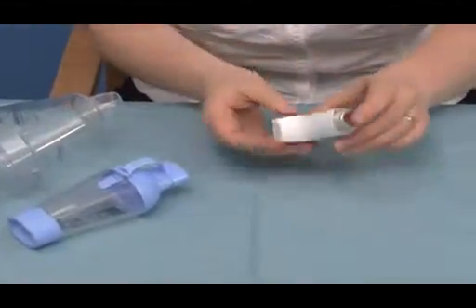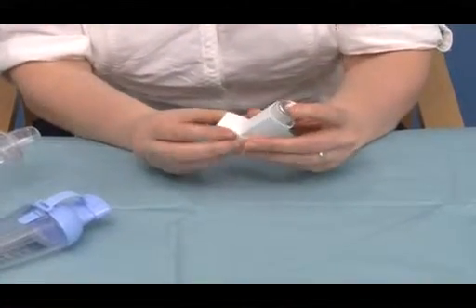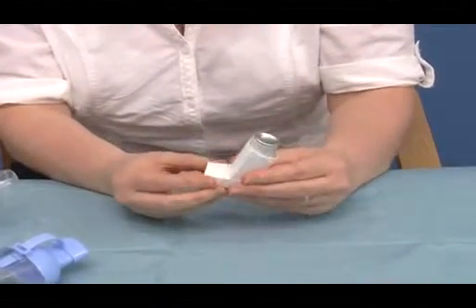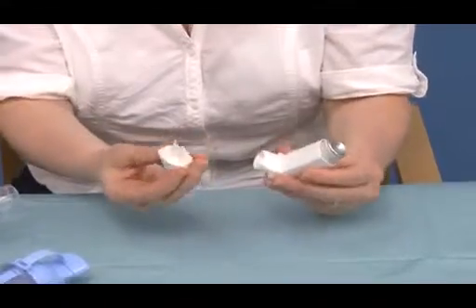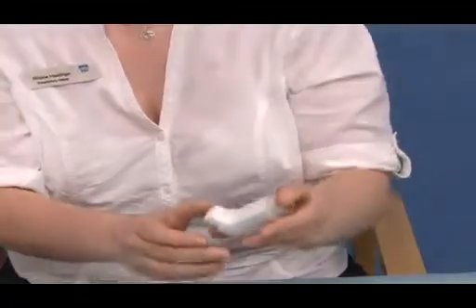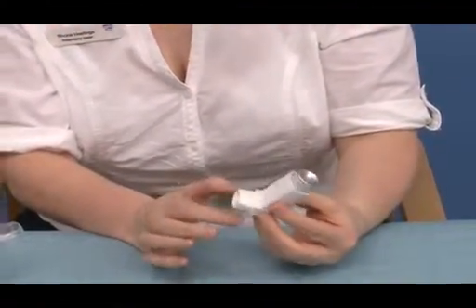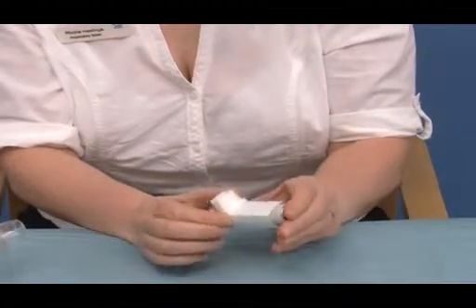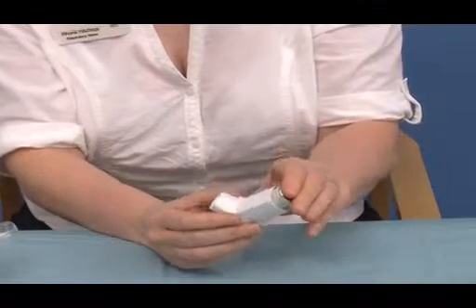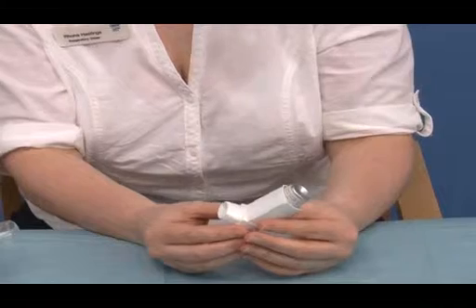The next inhaler we're going to look at is the pressurised metered dose inhaler. This can be used on its own, and patients would use this by removing the dust cap cover, again giving the medicine a shake, taking a breath in, breathing out, having a good seal with their lips round there, and as they start to breathe in, pressing down on the inhaler and carrying on breathing in. They would want to take a nice steady breath in.